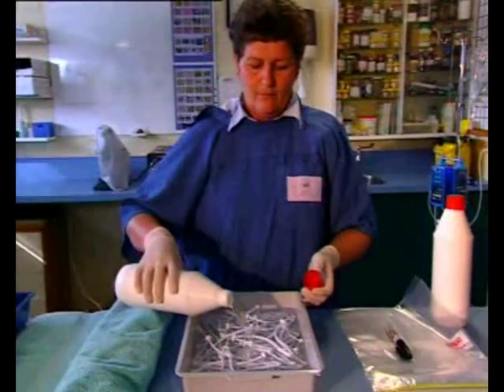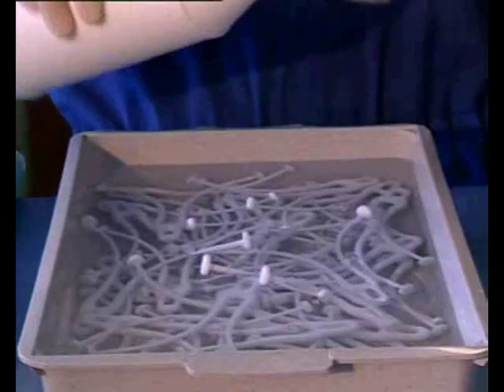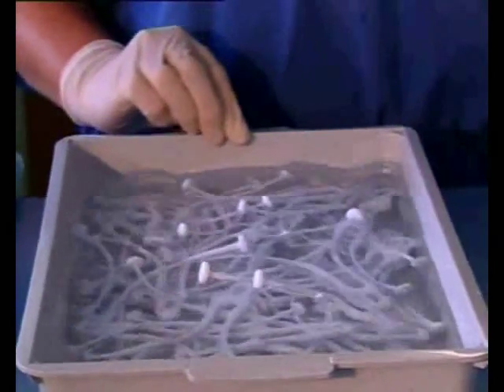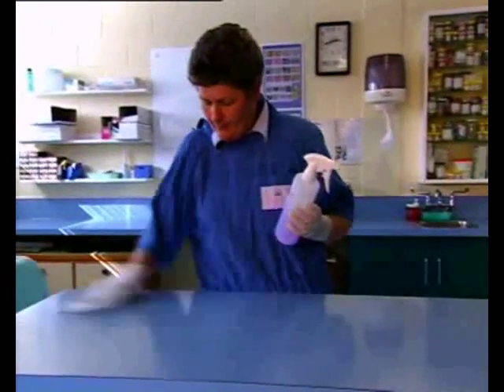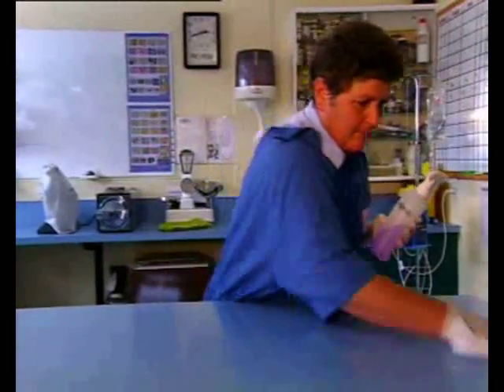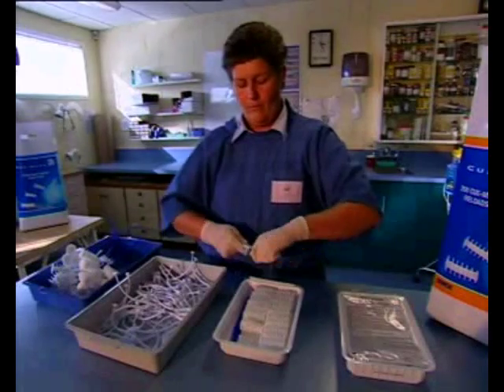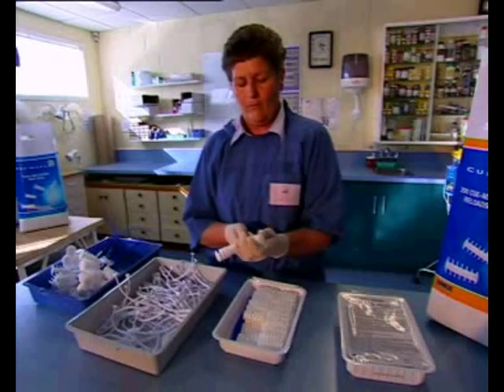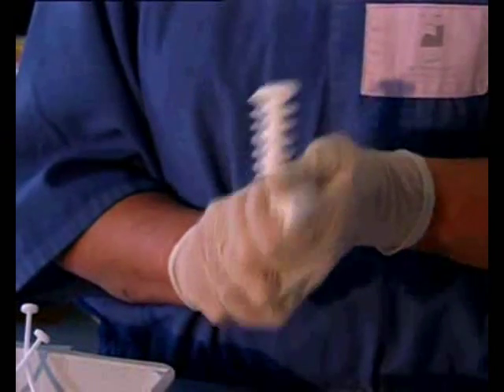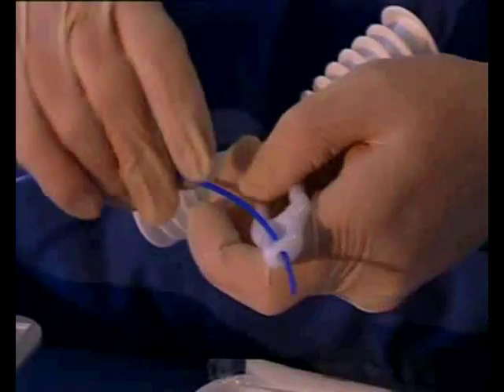The reloading procedure must be carried out in a suitable, clean environment, and protective clothes and gloves should be worn. Place the washed wishbones in a suitable container and soak in an approved veterinary sanitizer for one hour. Wipe down and disinfect the bench top with 70% alcohol solution. Each tray contains 20 pod pairs and 20 tails. Load the pods onto the wishbone arm, twisting the pod down the stem as shown. Ensure the wishbone button is secured into the comb of the pod and securely attached. Attach the tail and snap home.